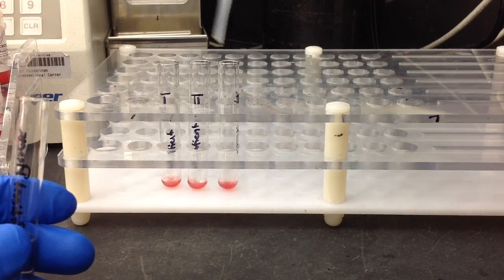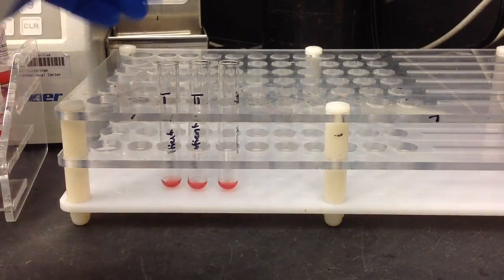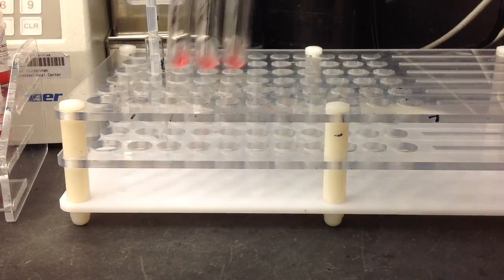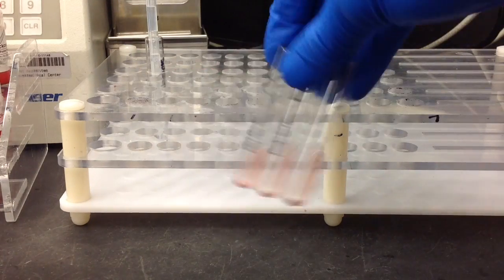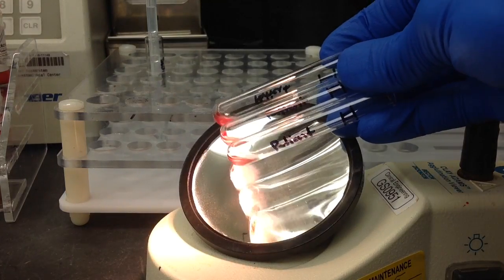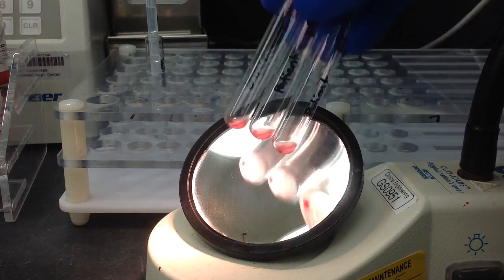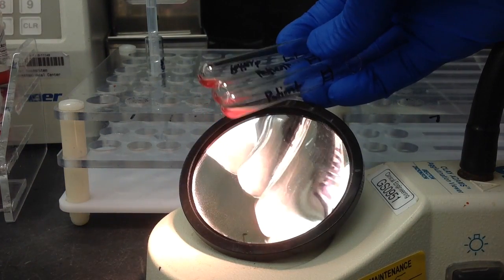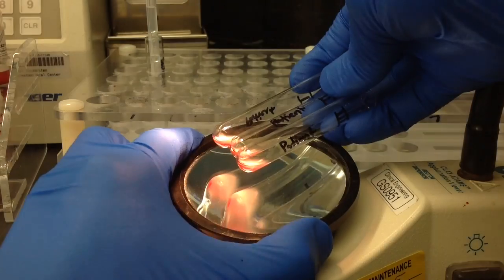...and give them a quick mix. We're going to do our immediate spin, so pop them into the centrifuge, pull them out, and read them under your agglutination viewer.